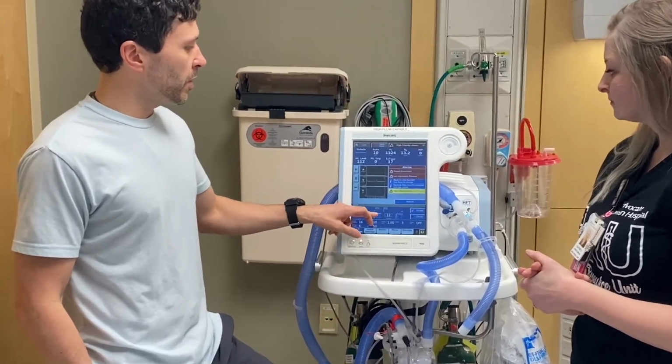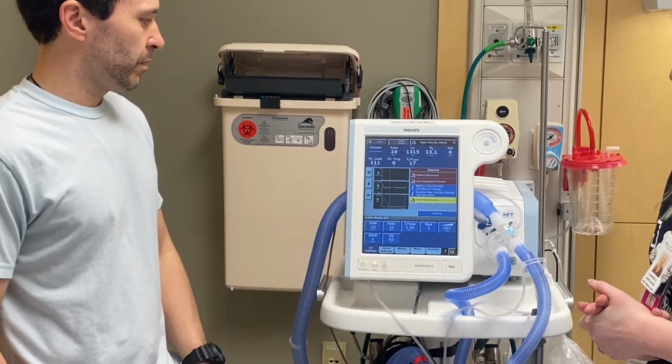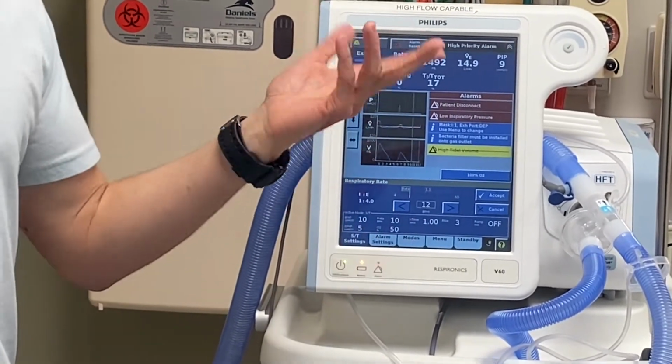But you'll typically see things like this. This will be the one you see the most. 10 and 5. 10, 5, your backup rate, anywhere from 10 to 12, 8 to 12 typically.